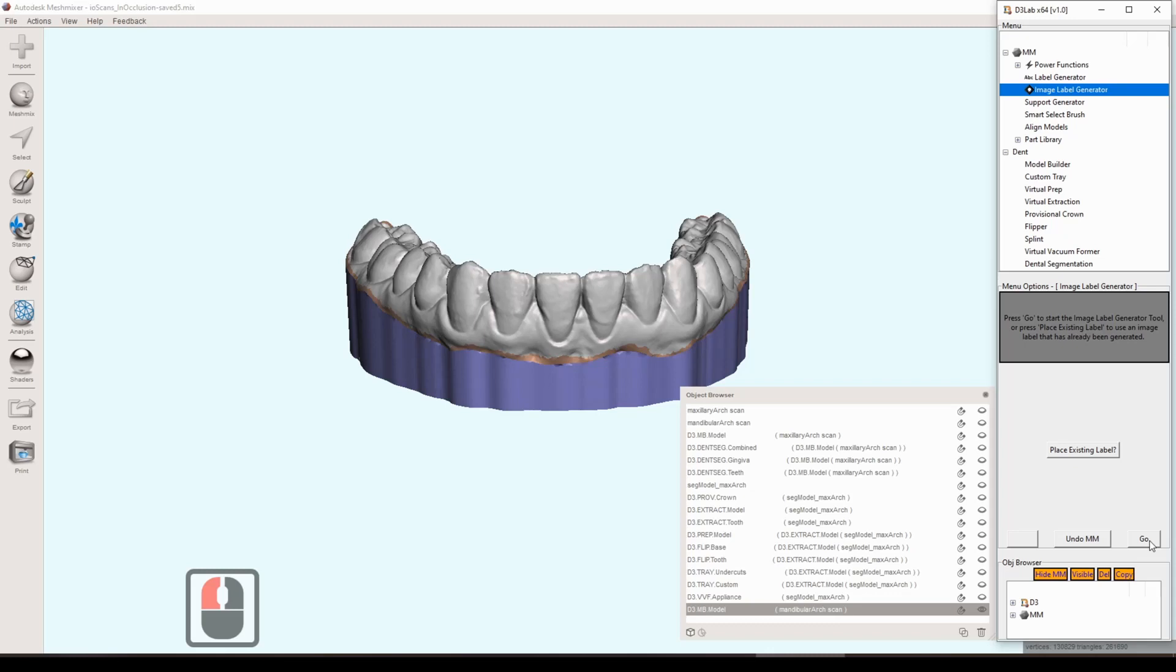Generating these stencils and getting a nice looking high resolution text label or image label takes quite a bit of finessing the picture to get it exactly right. One of the first videos I ever posted on this channel was how to manually emboss text and high resolution images on dental models, so you can check out that video to get a little bit more of an idea of what it takes to get that image looking really nice and what some of those constraints actually are.